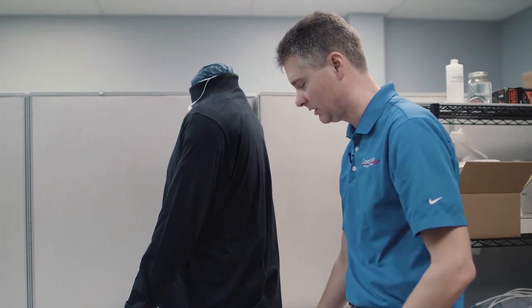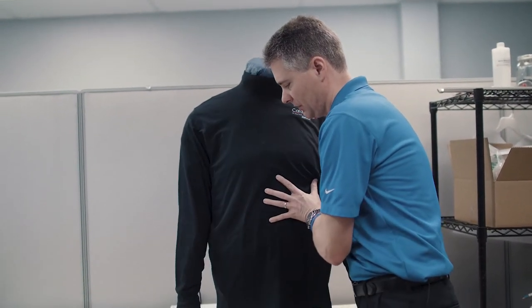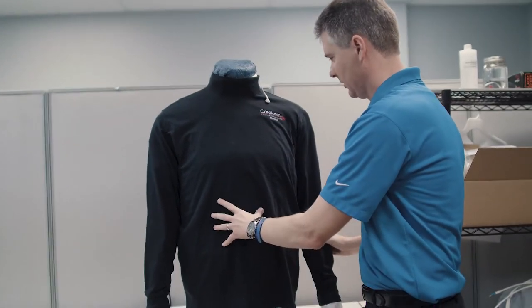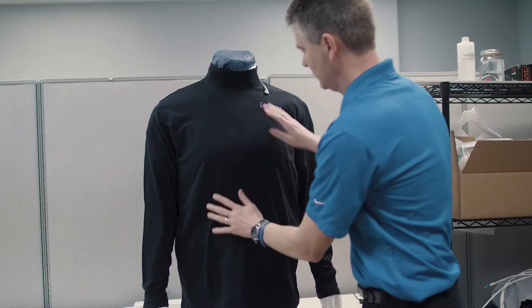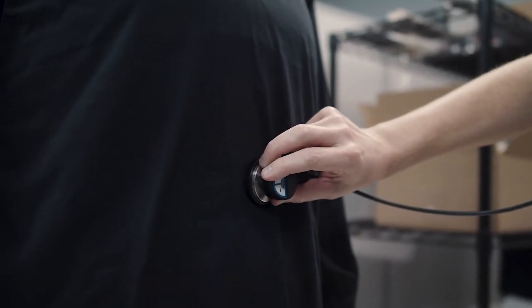Or you can just lay it down if it's in the way. This allows you to cover everything up, look as realistic as possible, and you can just auscultate right through the shirt with the simscope and still feel the pulse as well.